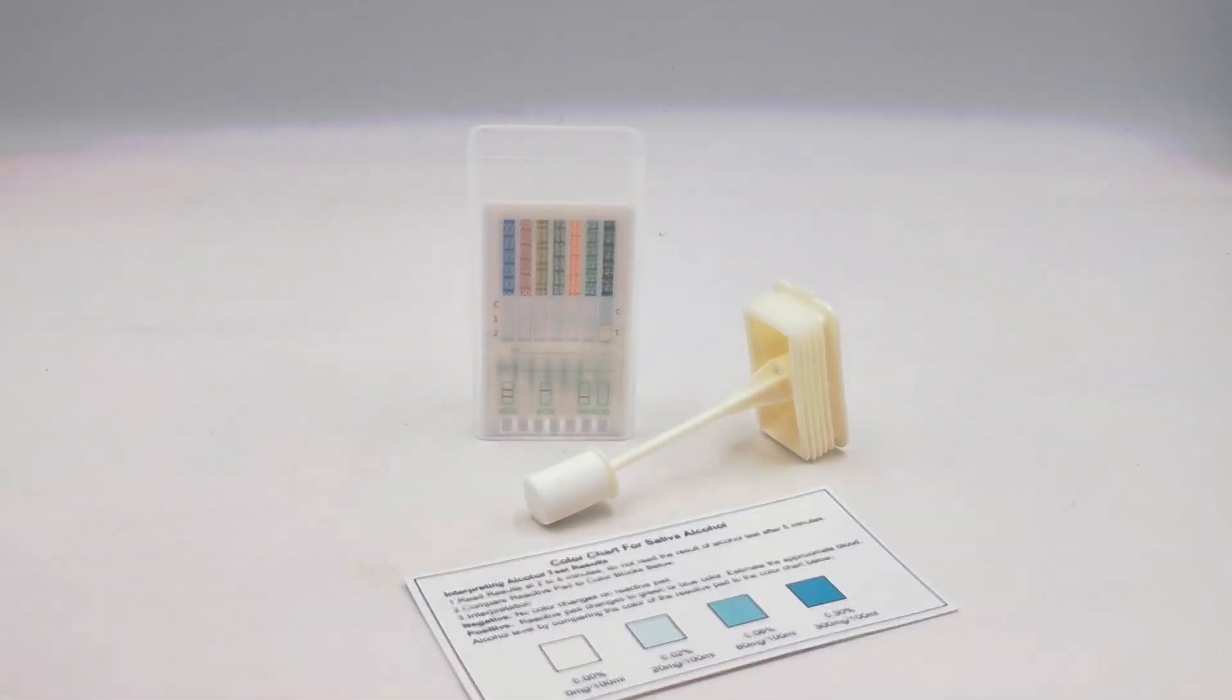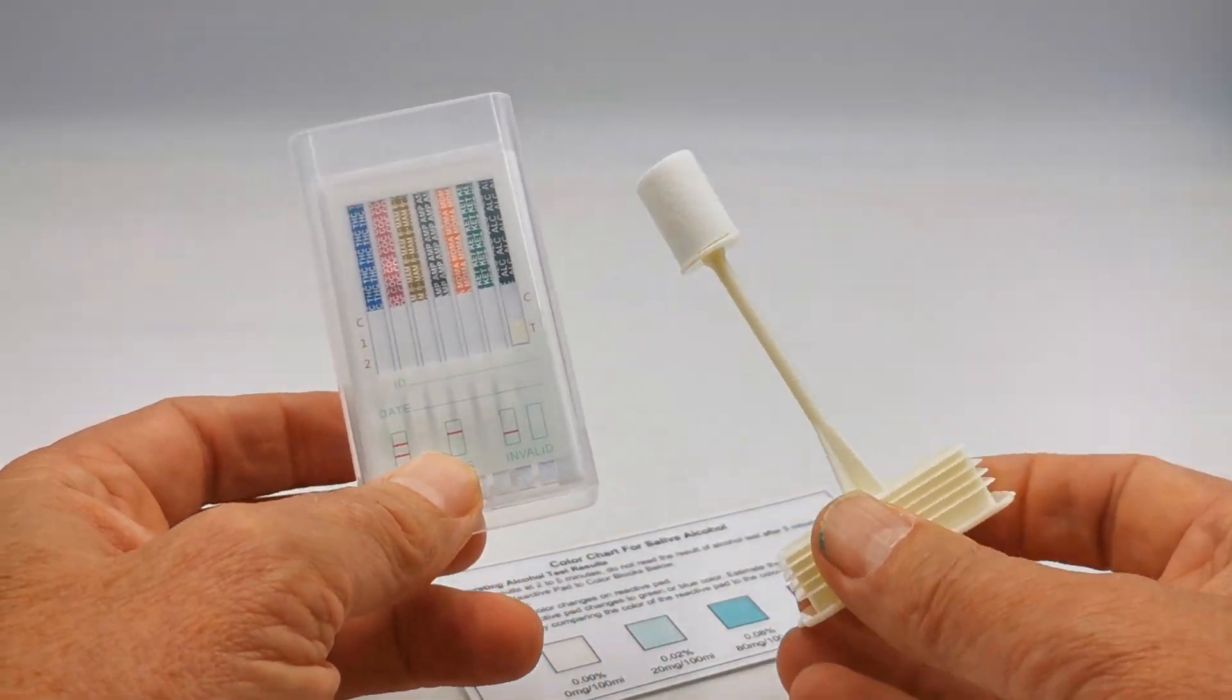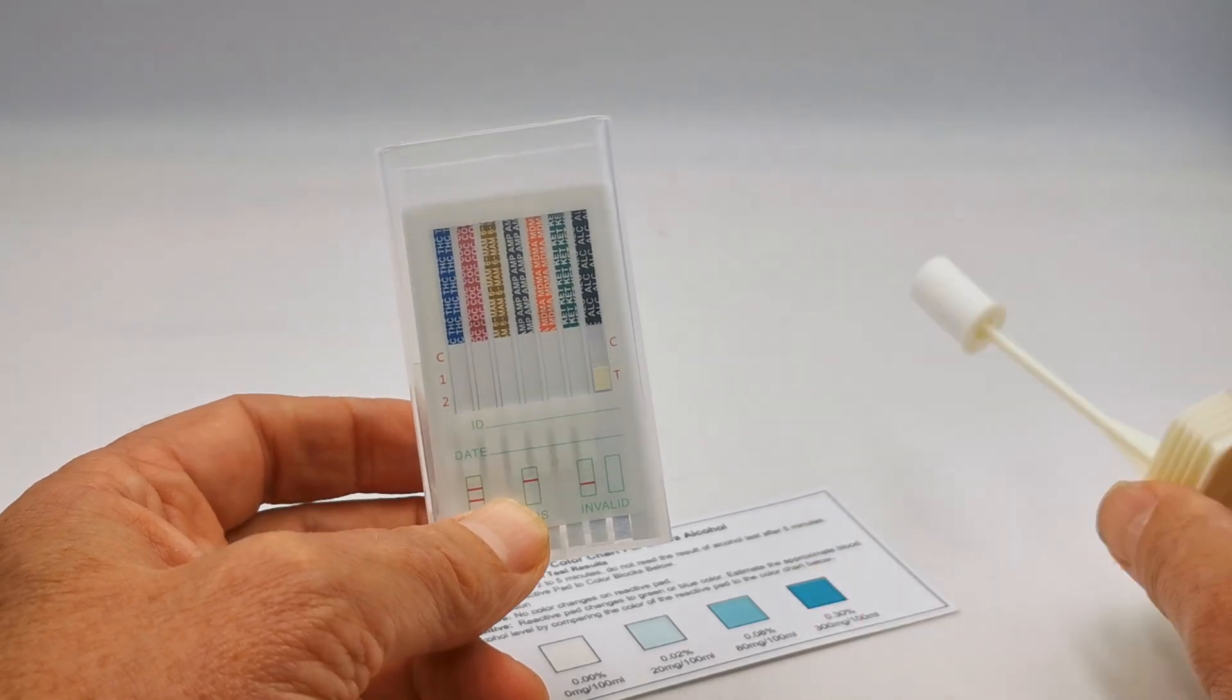When you open this, what you get is one of these little cube devices and in a cellophane wrap, a swab collector for the saliva.